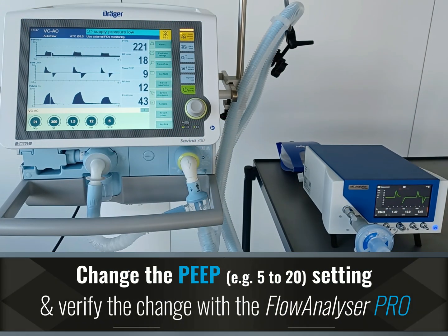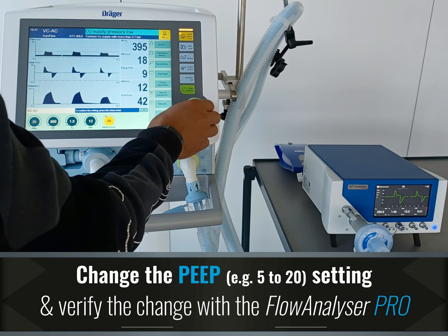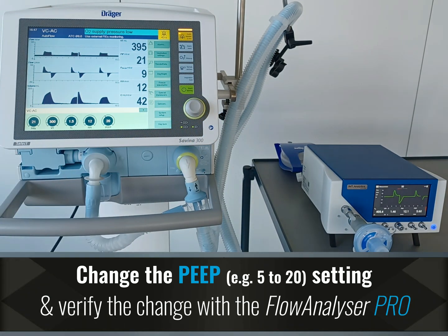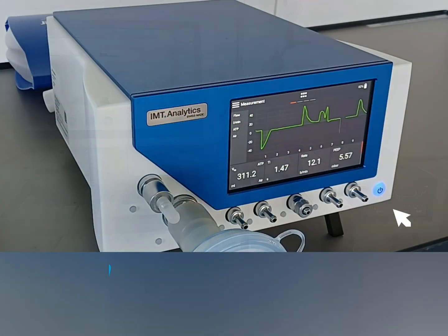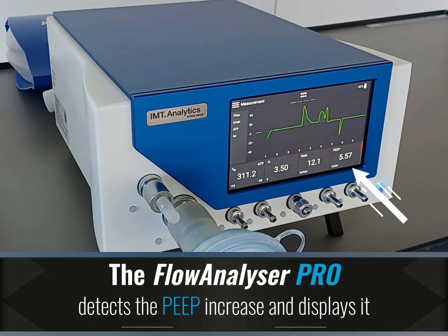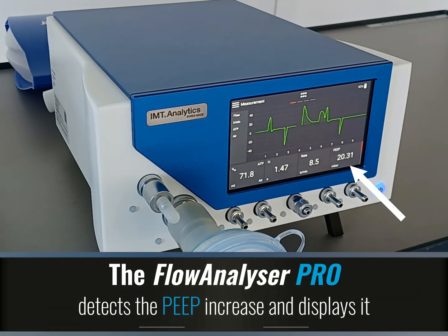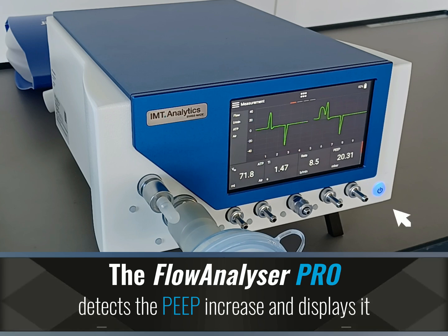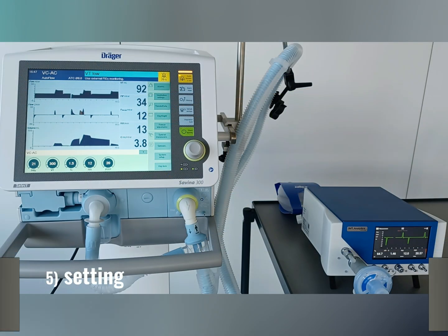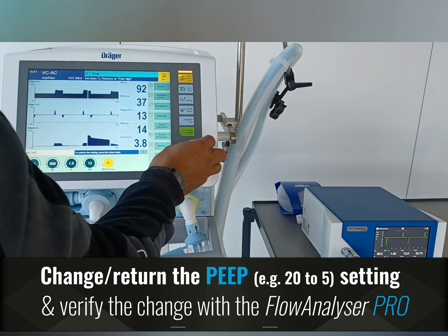Change the PEEP setting and verify the change. The Flow Analyzer Pro detects the PEEP increase and displays it. The Flow Analyzer Pro detects the PEEP drop and displays it. Change or return the PEEP setting and verify the change.